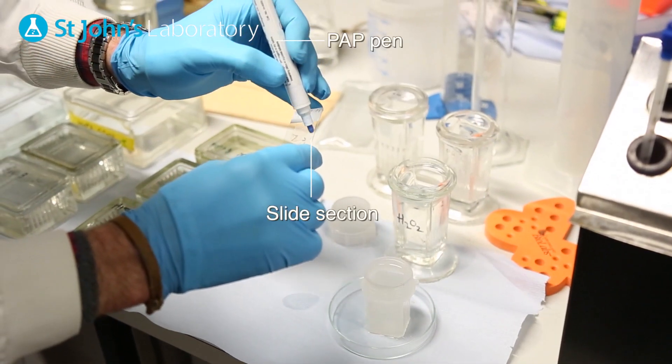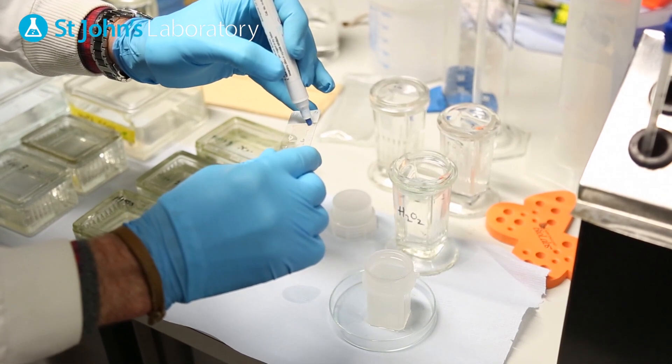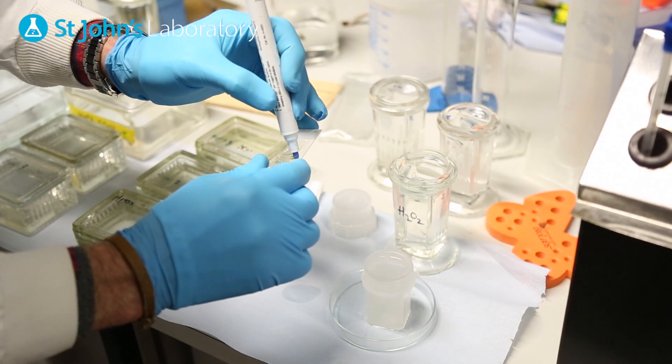Encircling the tissue section with a PAP pen will allow the hydrophobic residue to localize the antibody solution through the process of application.